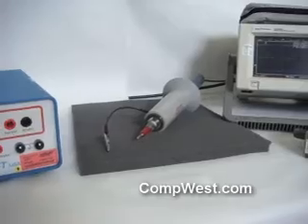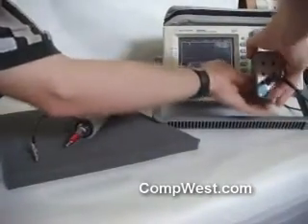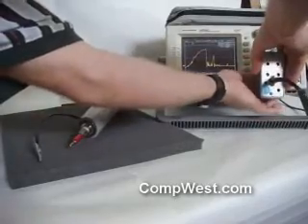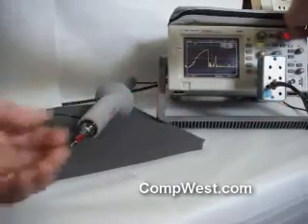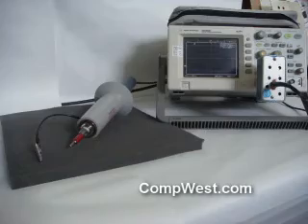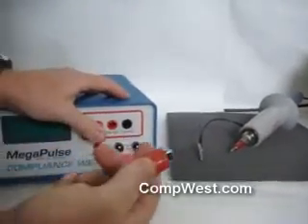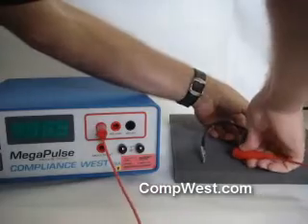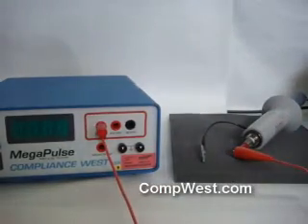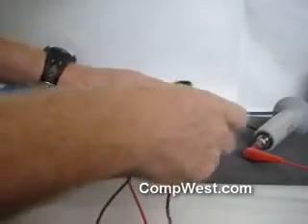First, connect the probe BNC to an input channel of the oscilloscope. Then connect the 50 ohm output lead of the DeFib5 to the probe tip. Connect the return of the DeFib5 to the black cable of the probe.